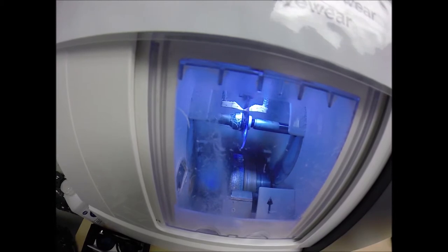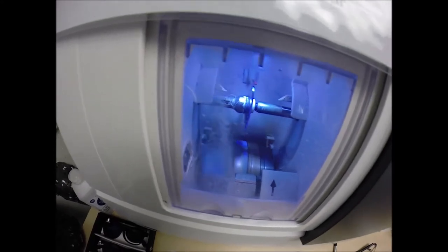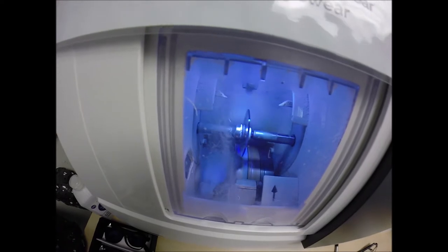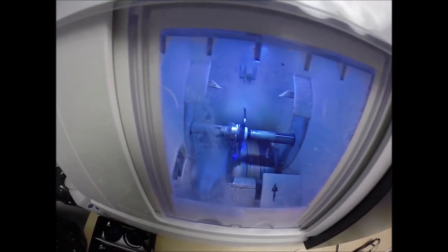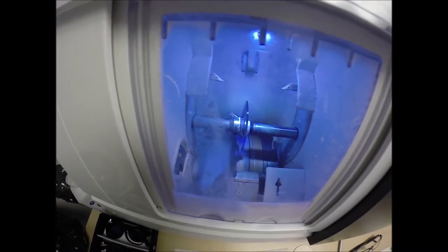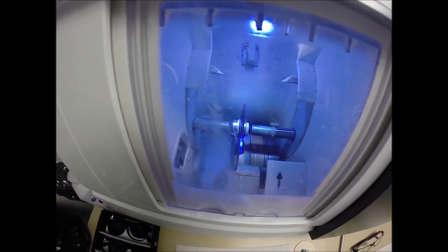You can see it's just tracing the shape of the right lens. And the old saying — measure twice, cut once. It's measuring the thickness of the lens at every point to know exactly and precisely where to place the bevel so you have the least amount of edge thickness showing, of which you will have none. Polycarbonate lenses cut dry, meaning no water sprays onto them while they're cutting, unlike plastic, high-index plastic, and Trivex, which cut wet — meaning water sprays onto those lenses for the duration of the cutting cycle.